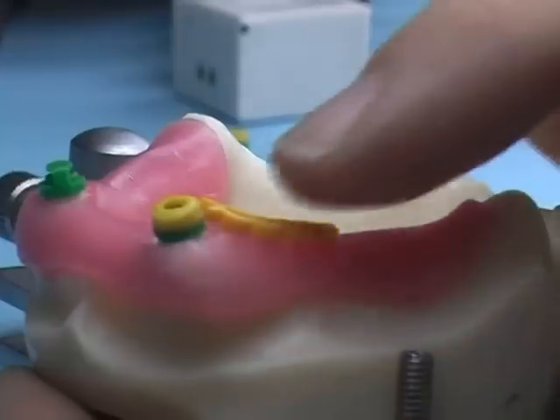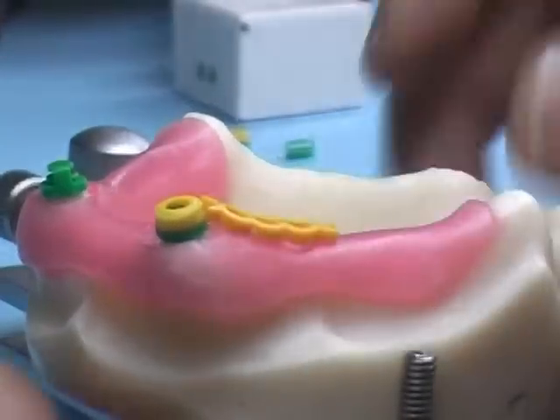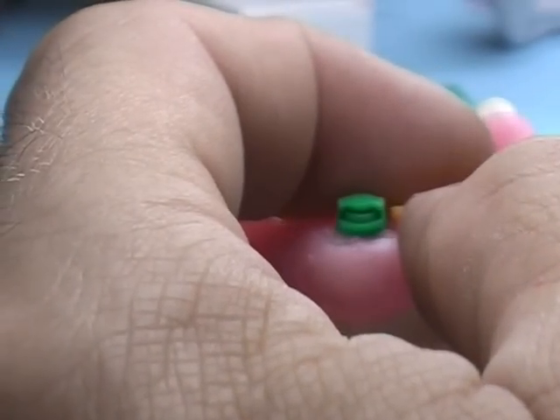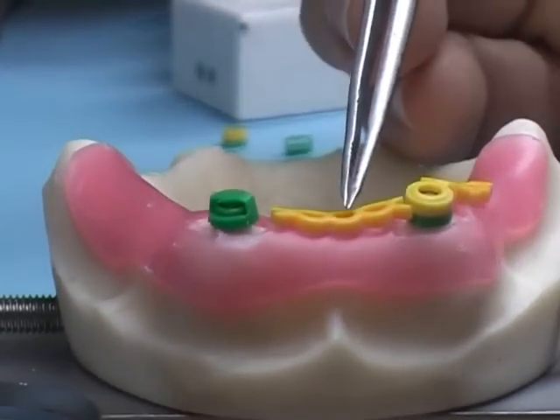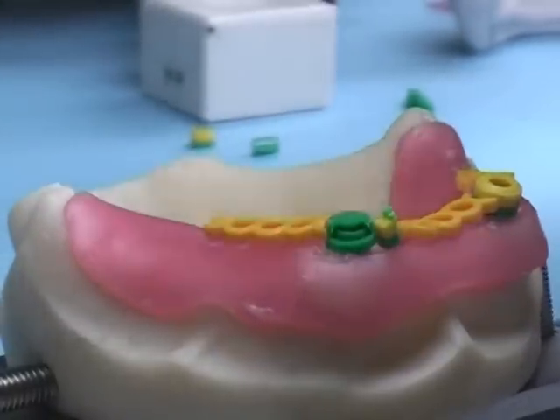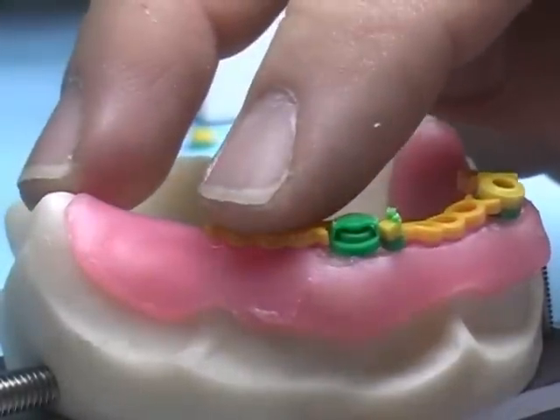These connectors are provided with the OT Box Kits and can be shaped and adapted to your project's needs. During the many steps, verify available spaces using the trial mask.